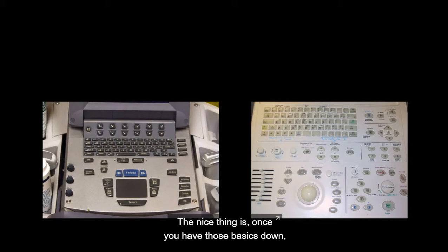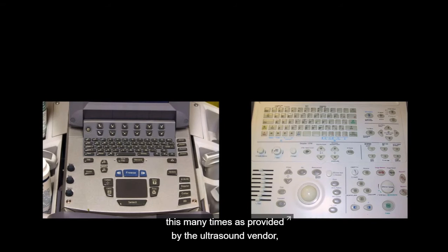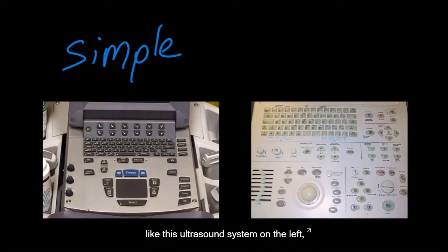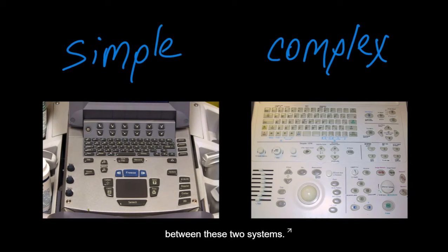The nice thing is once you have those basics down, you can get additional training on your specific ultrasound system. This many times is provided by the ultrasound vendor or by someone in your clinical setting who already knows how to use the machine. And while layouts between different ultrasound systems do vary, many of the controls are very similar between each ultrasound system. The layouts may look very simple, like this ultrasound system on the left, or may look very complex. But I assure you, many of the controls are the same between these two systems.